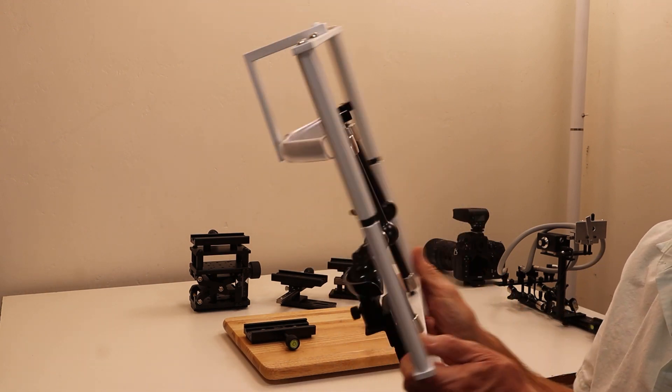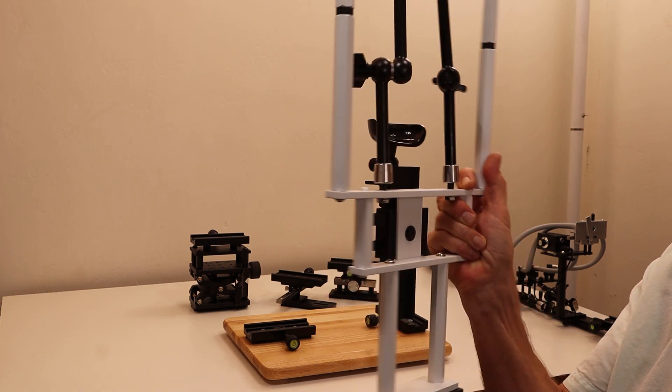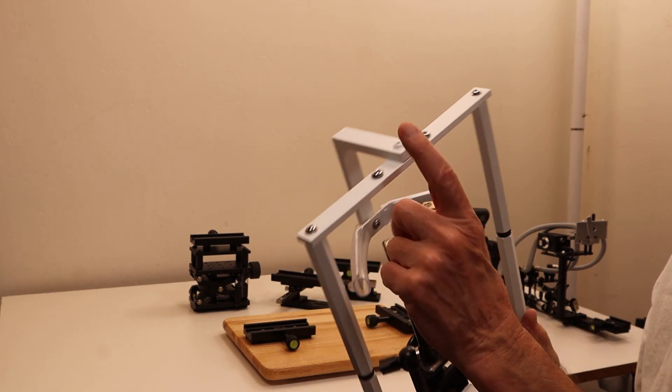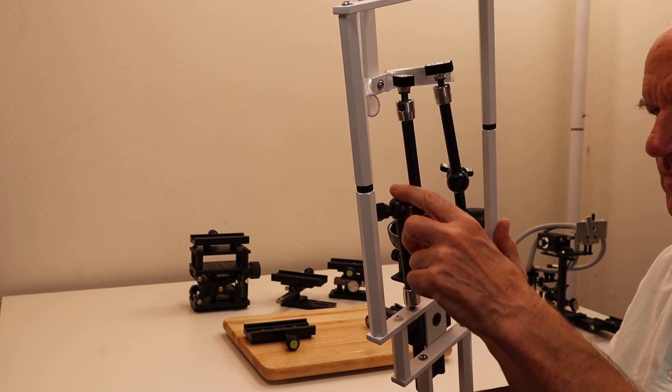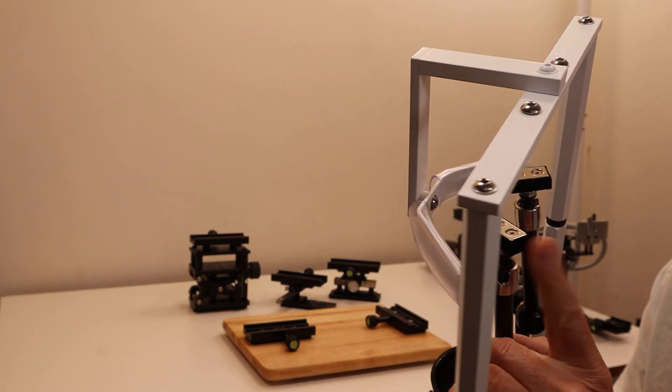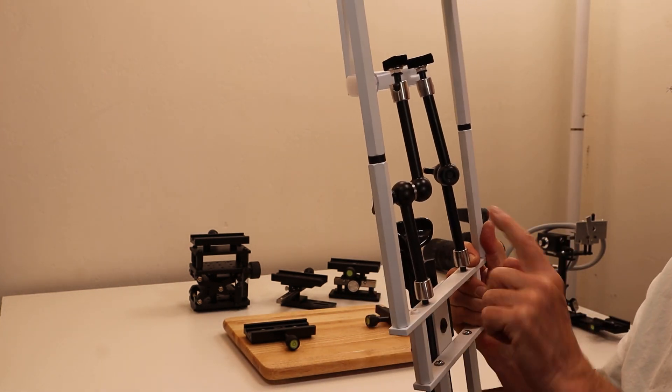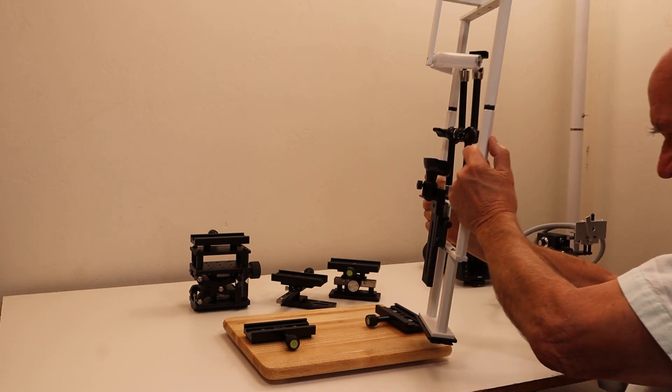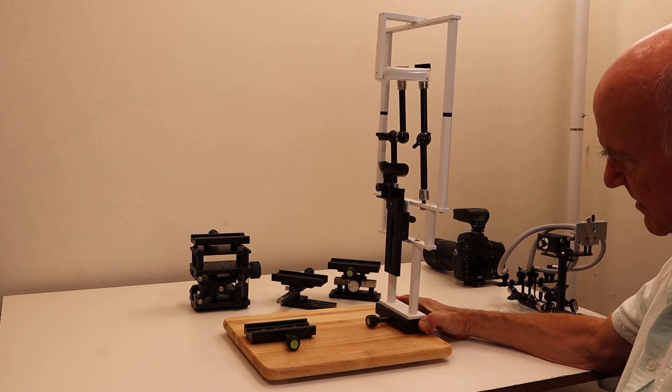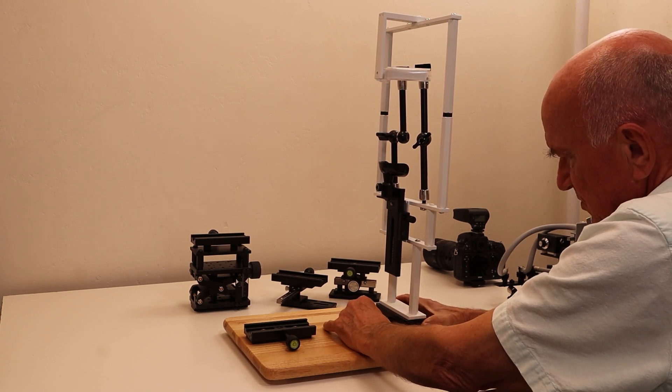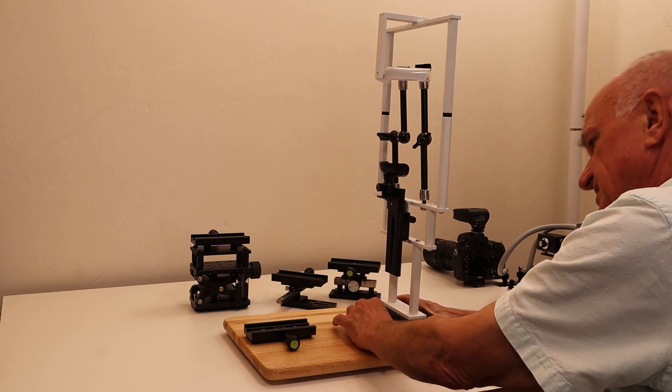This is a new design which includes a pair of magic arms. There are also a couple of spare mounting holes if you want further magic arm attachments. Each is fitted with a magnet that will receive a light guide. The chin cup faces the client, so that goes in like this. After you slide it in, you tighten the 120 millimeter Arca Swiss clamp until it's just snug.